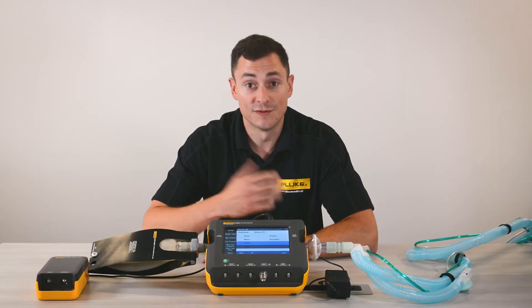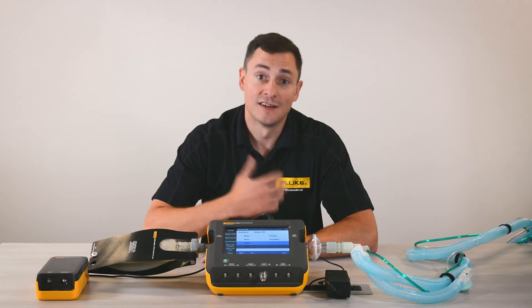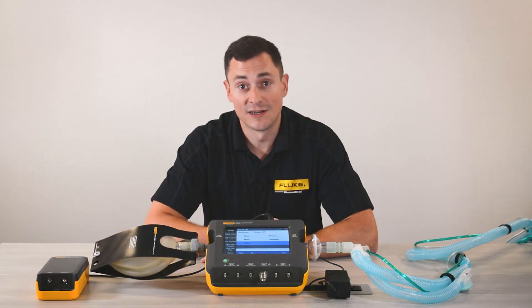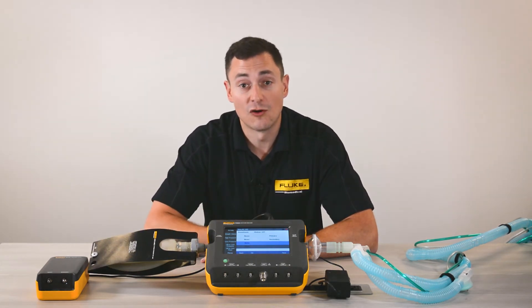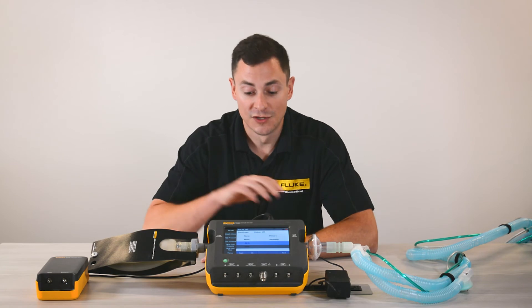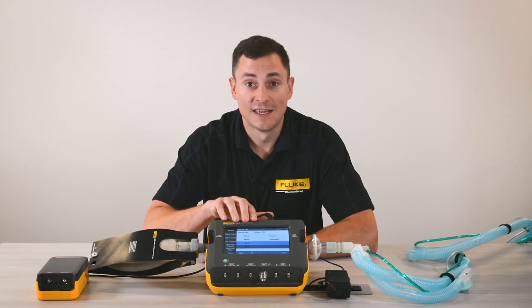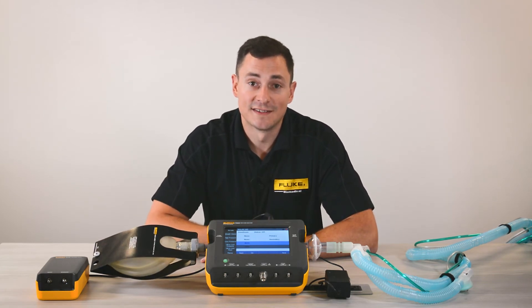So if you're using multiple tools like an anesthetic agent analyzer, a CO2 analyzer, or an N2O analyzer, you can aggregate those all into one tool, use that with your VT 900A, and carry so much less to get your testing done.